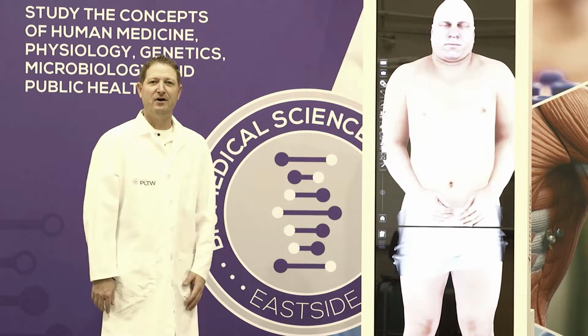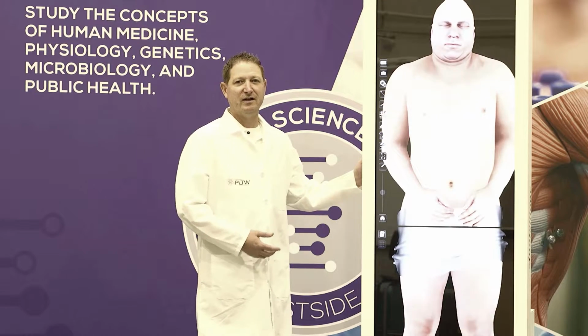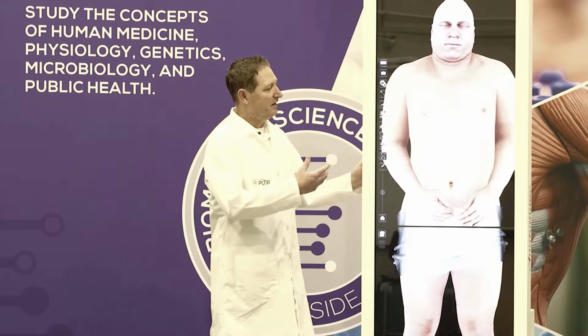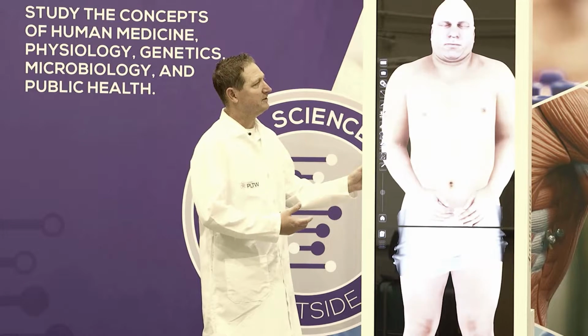Today we want to show off our Anatomage table that CTE purchased for us. This Anatomage table is a virtual dissection table that allows us to use cadavers in a virtual setting so that we can show high school students the way that a medical school would do a dissection. This is an actual cadaver, and this person donated themselves for science. So let's take a look.